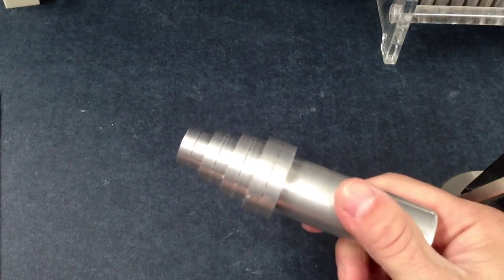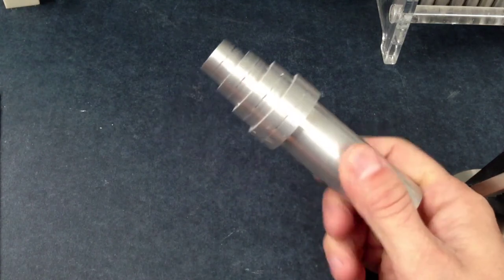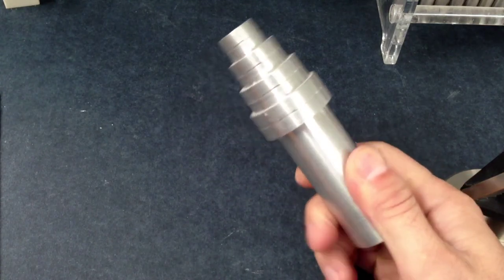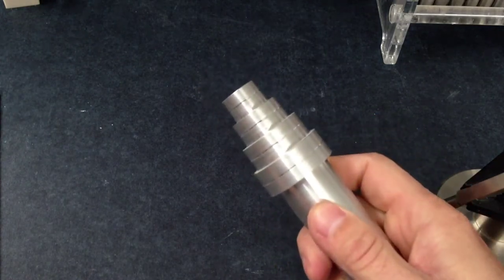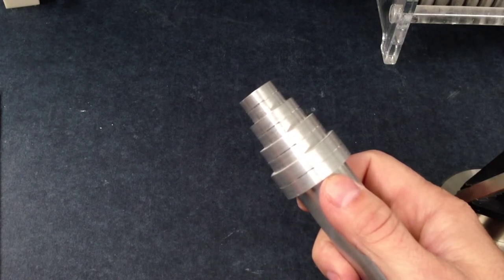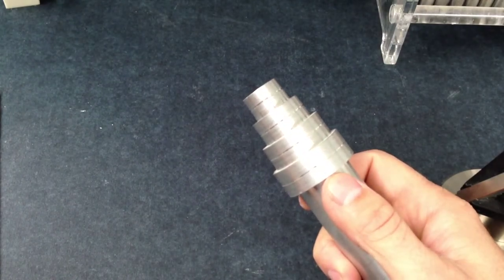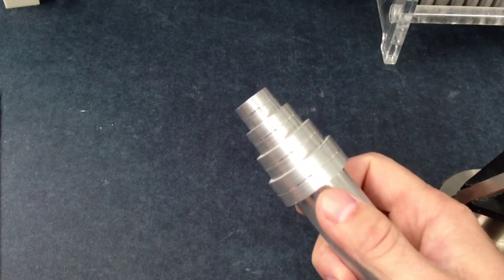A turret is an optional item you can use for bending orthodontic wire to make different size arch forms. One option is to use anything around you at your lab bench, such as your suction tip.